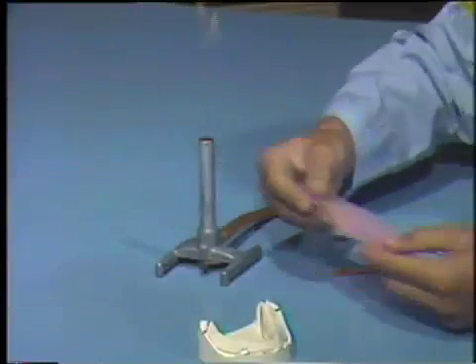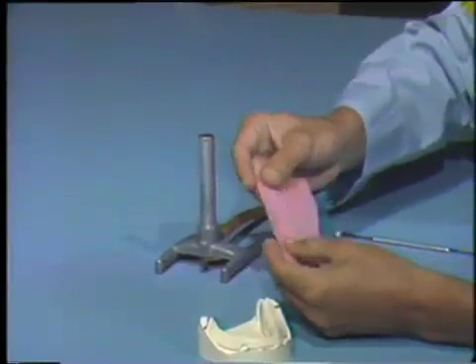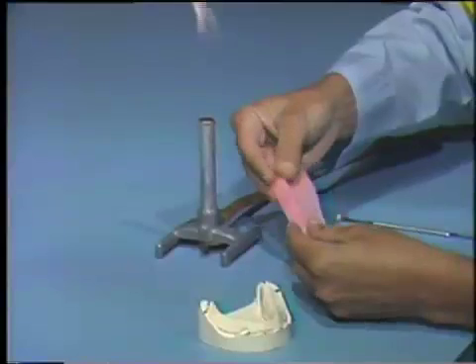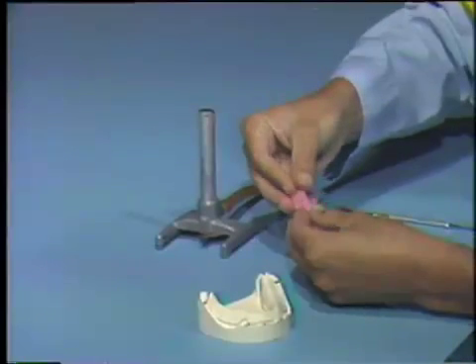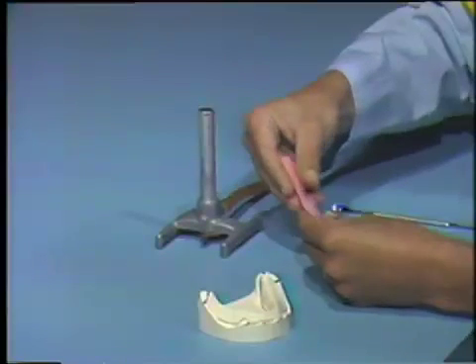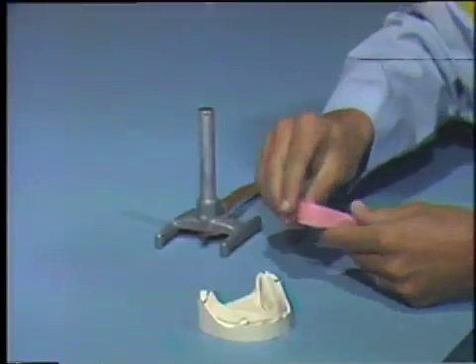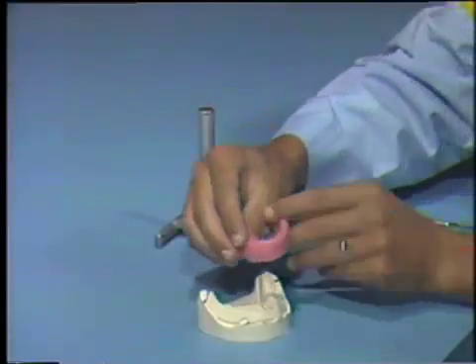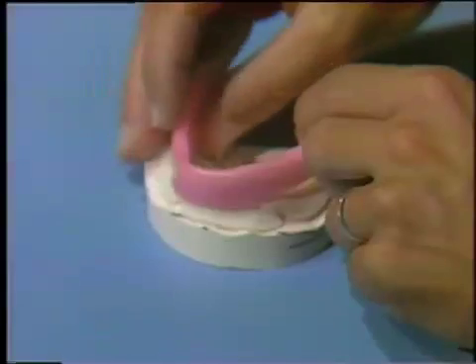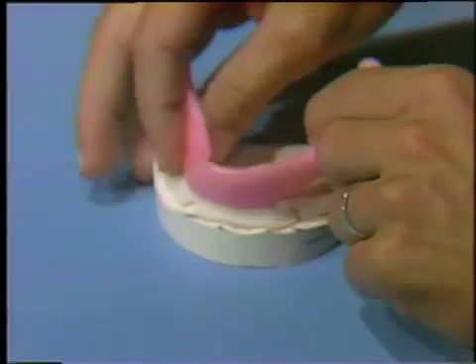Heat one sheet of pink baseplate wax and roll it to form the wax occlusal rim. The roll should simulate the final shape of the rim.